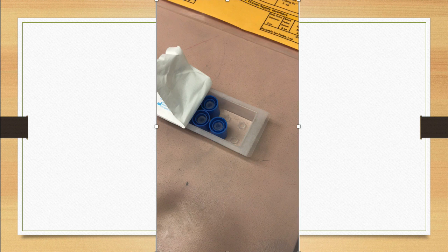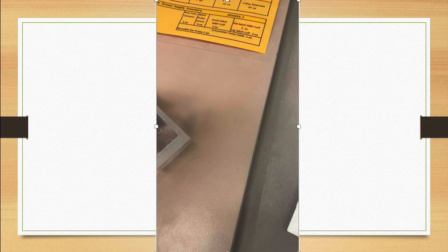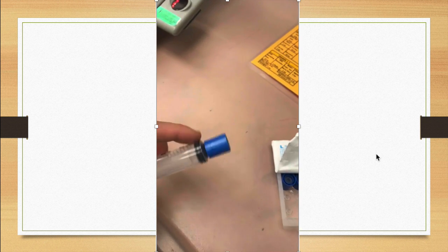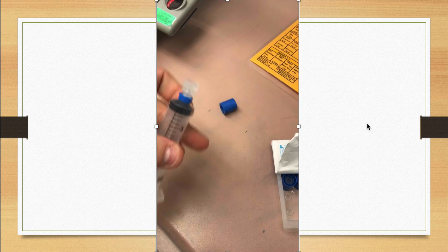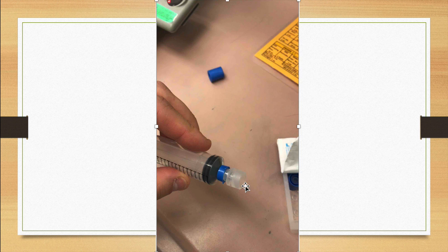Okay, here's a video of me attempting to demonstrate what I just mentioned. Here I am screwing in the cap on an empty syringe. There it is. I'm gonna pop it off now. Boop. And there's the inner cap staying put. So if you see a syringe like this, you have to toss it. Do not use it on the next patient.